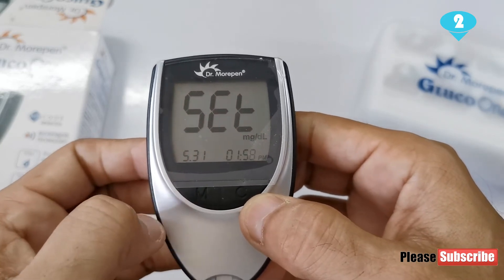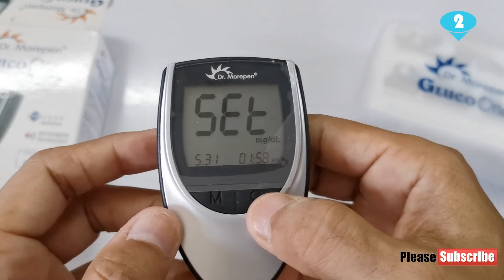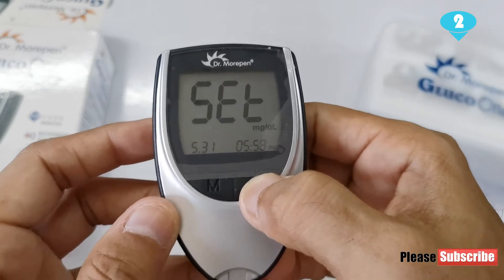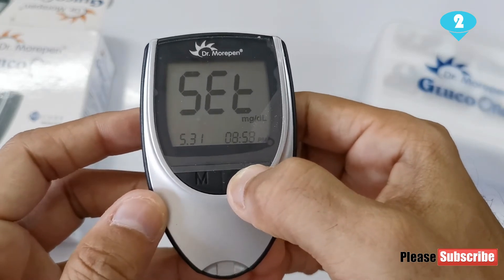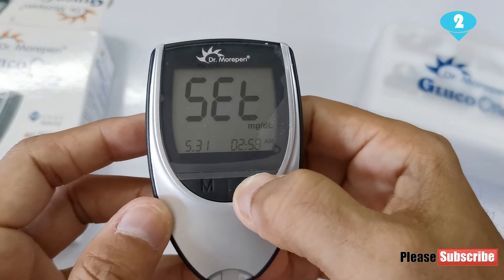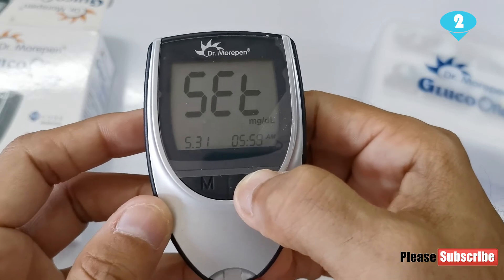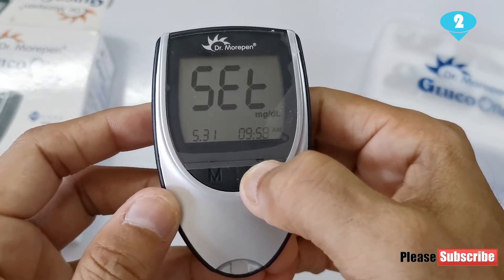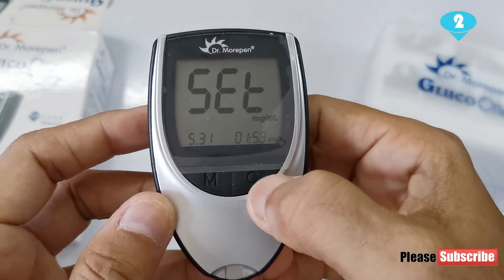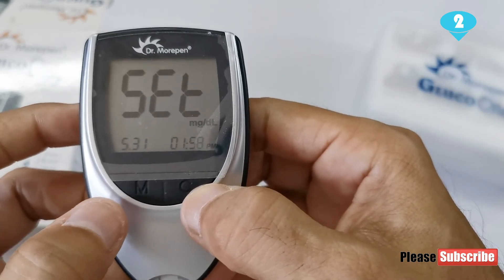It will take me to the time wherein I can adjust the hour right now. I can hit the C button and go about changing the hour. I passed the AM — now this is AM — I need to take it to PM. There you go, it's changed the hour.